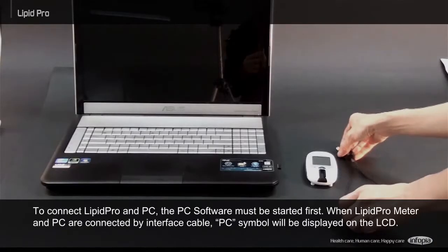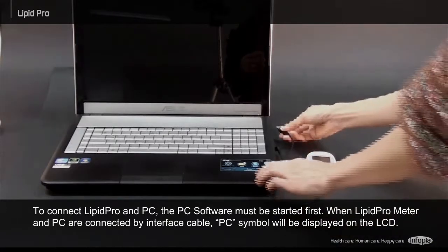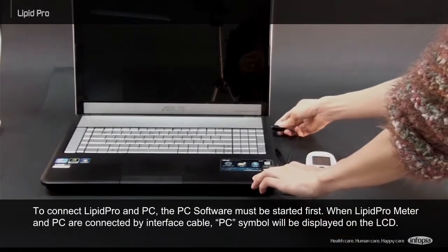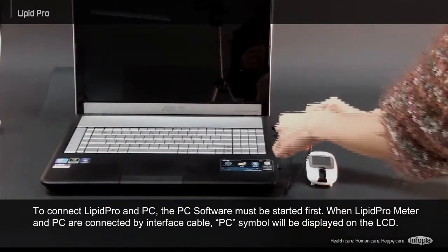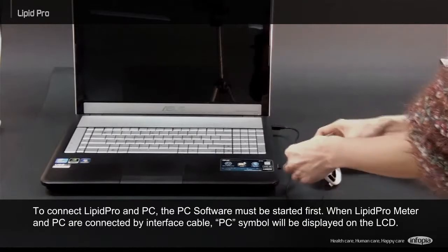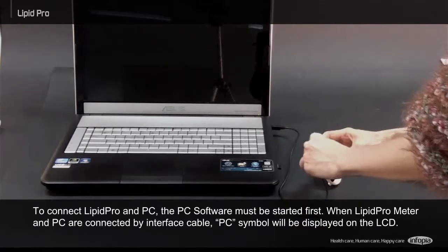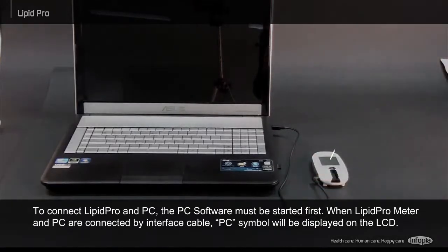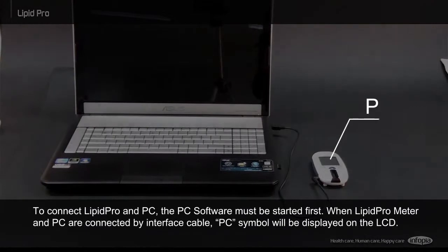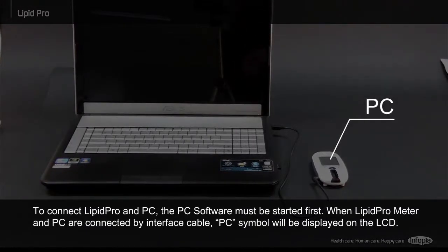To connect Lipid Pro and PC, the PC software must be started first. When the Lipid Pro Meter and PC are connected by interface cable, the PC symbol will be displayed on the LCD.